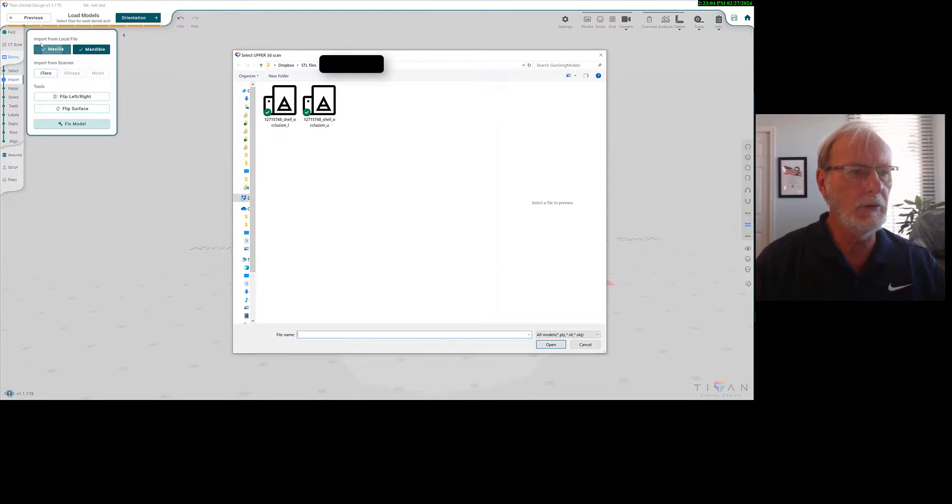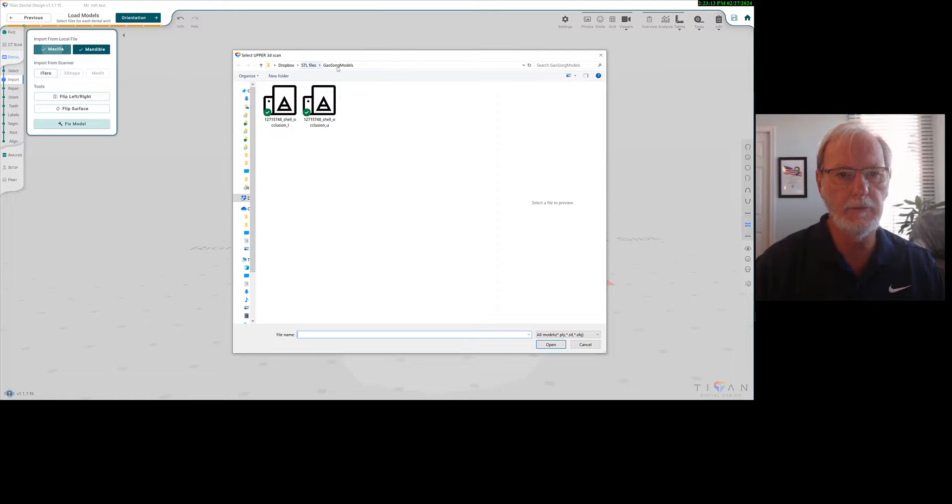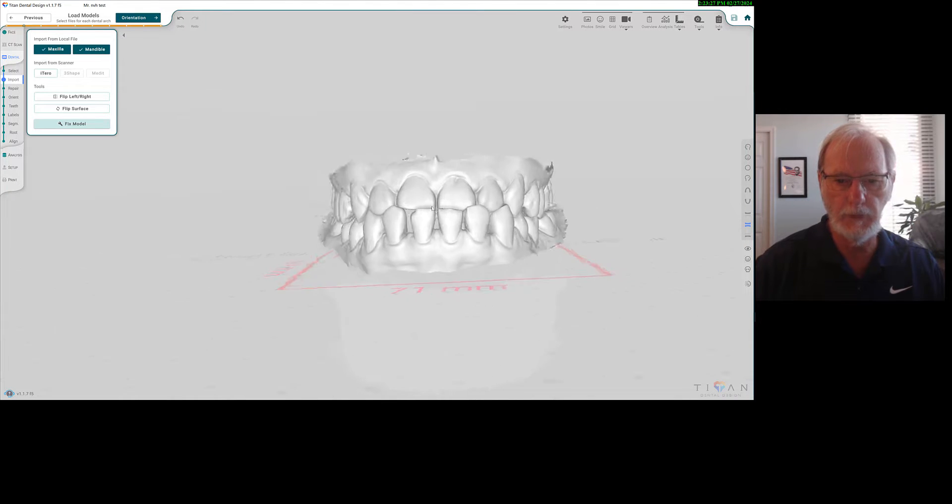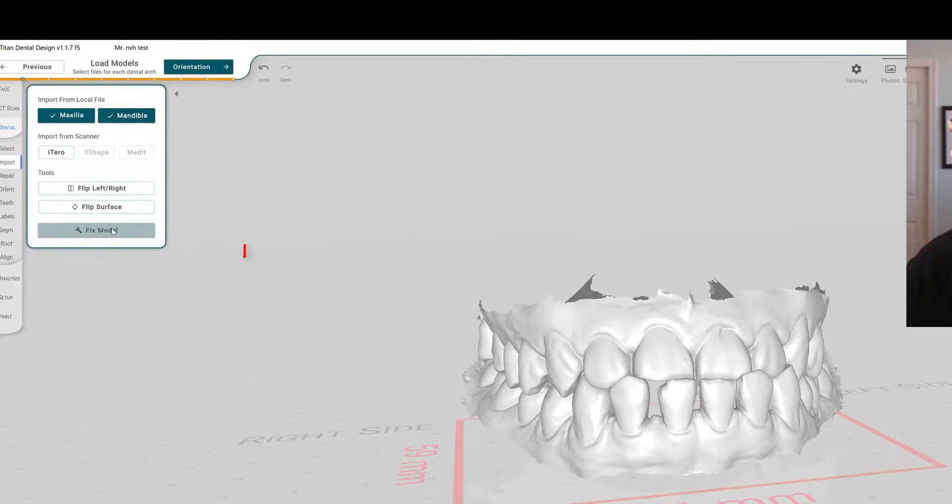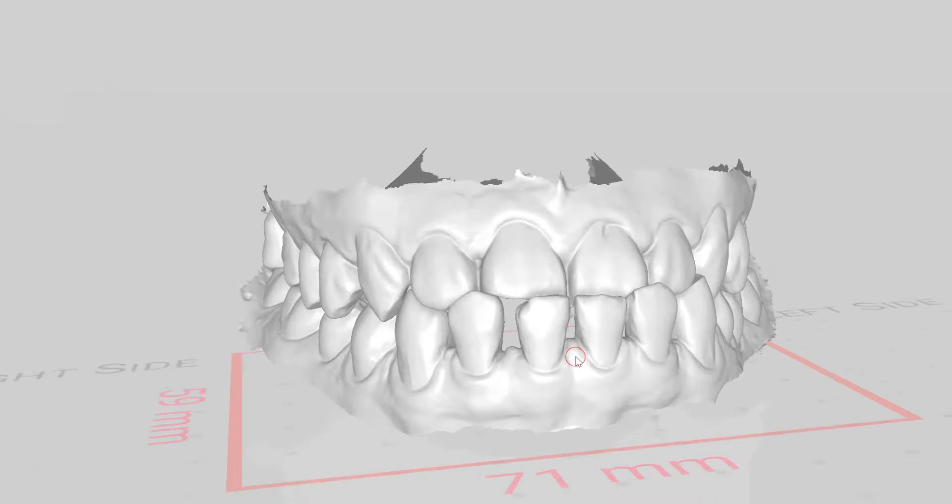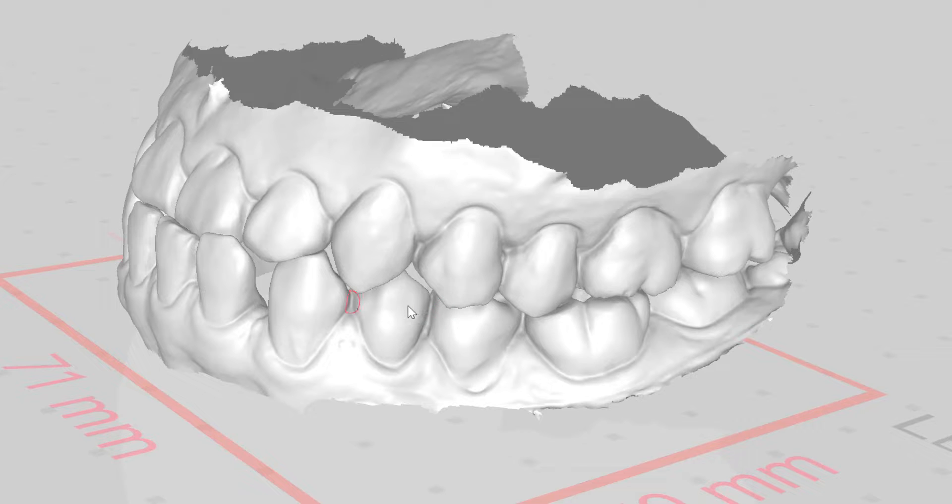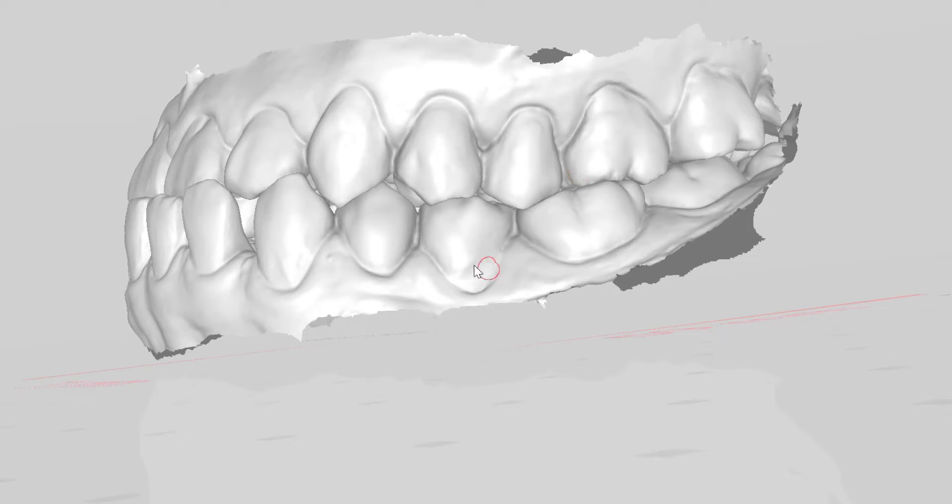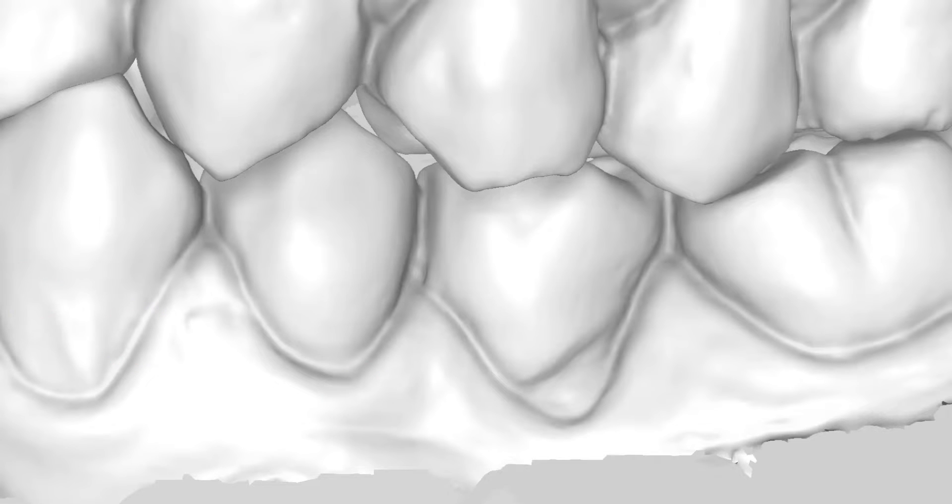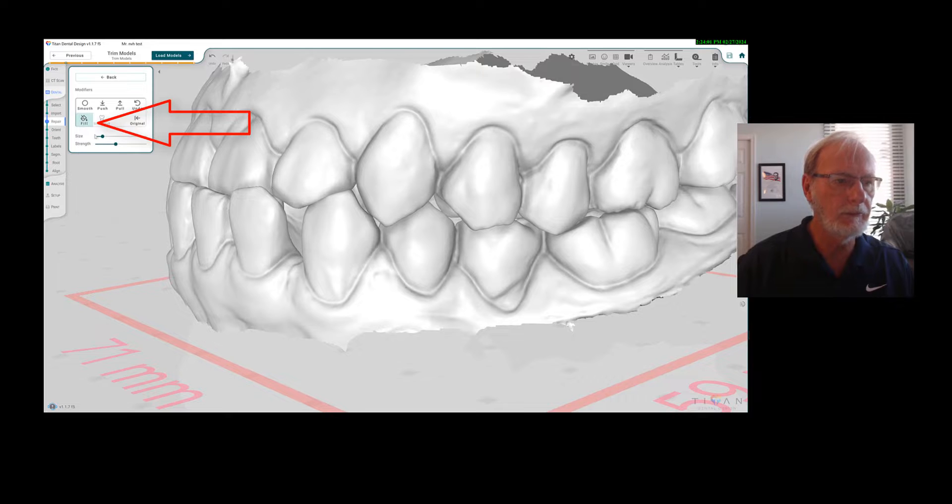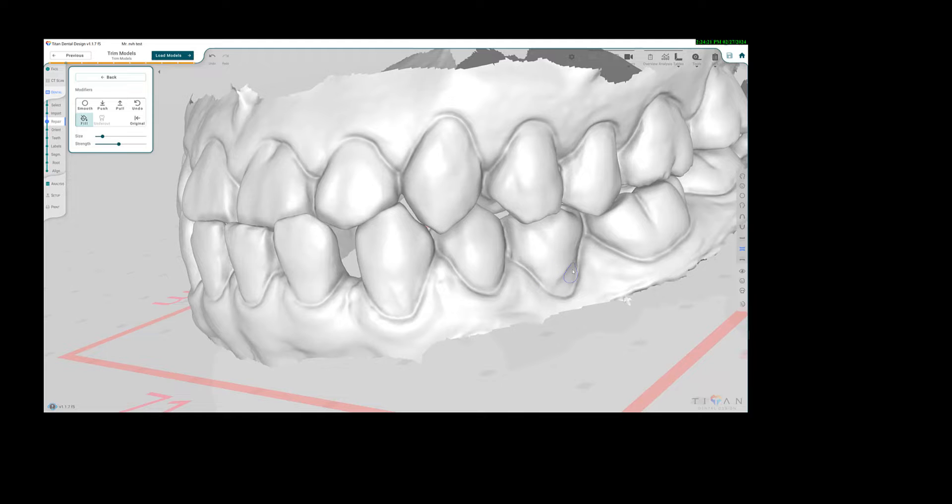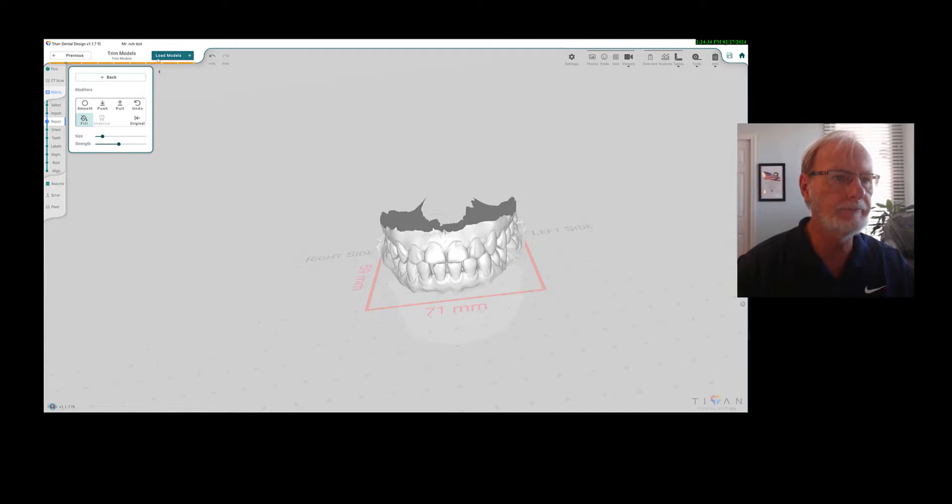Obviously you're going to import the local files, the maxilla and the mandible, and you will get them from your own computer. In my case these are the two files and the files are now in good position, two STLs. You can also decide to fix the model because on this model in particular, you will see there is some significant wear here that probably will be causing some issues with the aligners, so I will fill this spot. This is done, so I'm going to apply the modification.